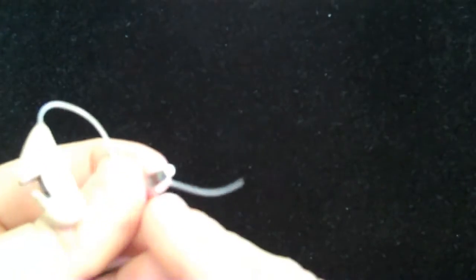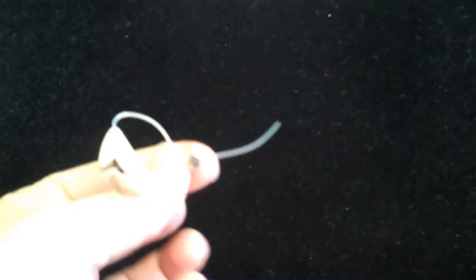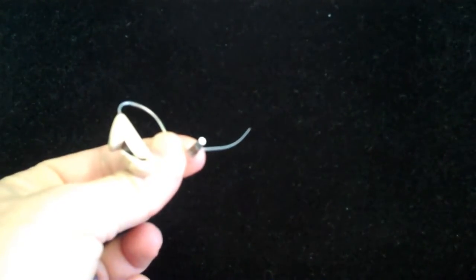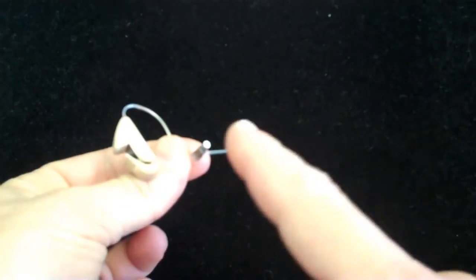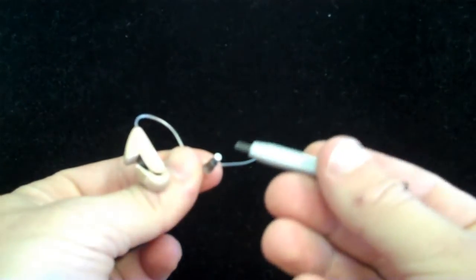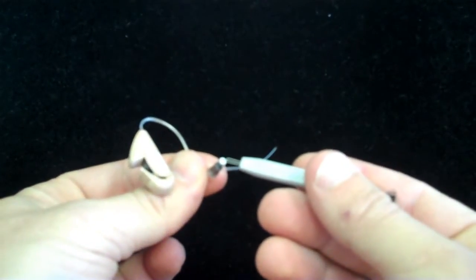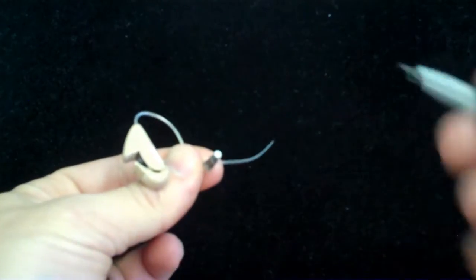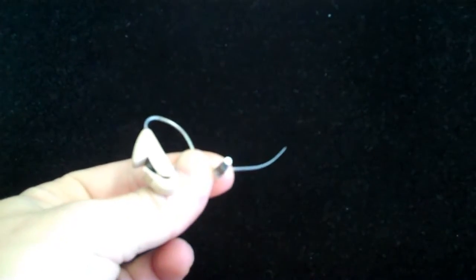Now secondly, at the end of the receiver, I'm not sure if you can see this on camera, but you have a very small white basket on the end here. This is the wax trap in question.